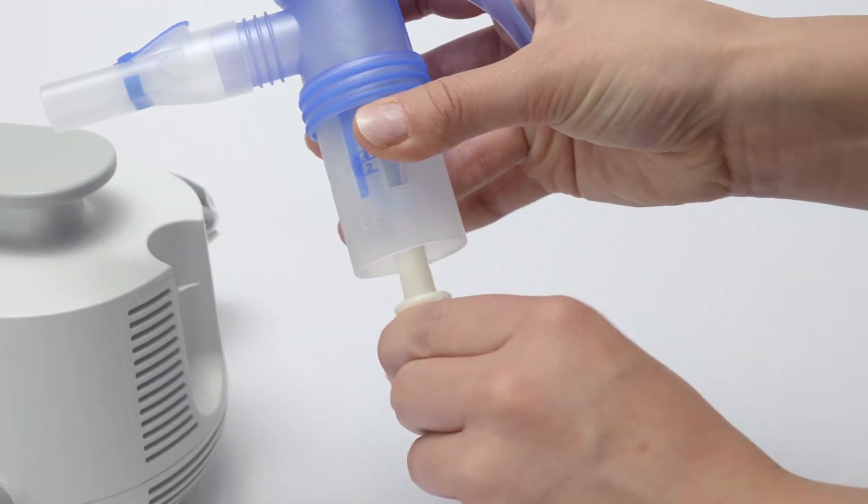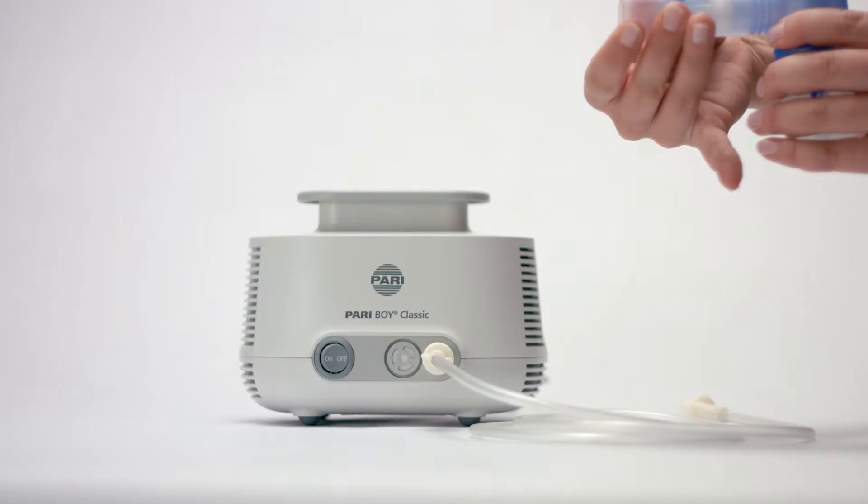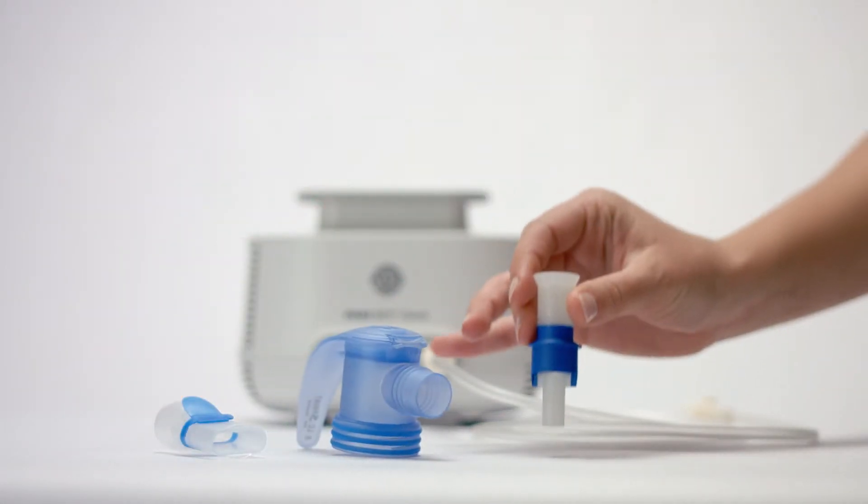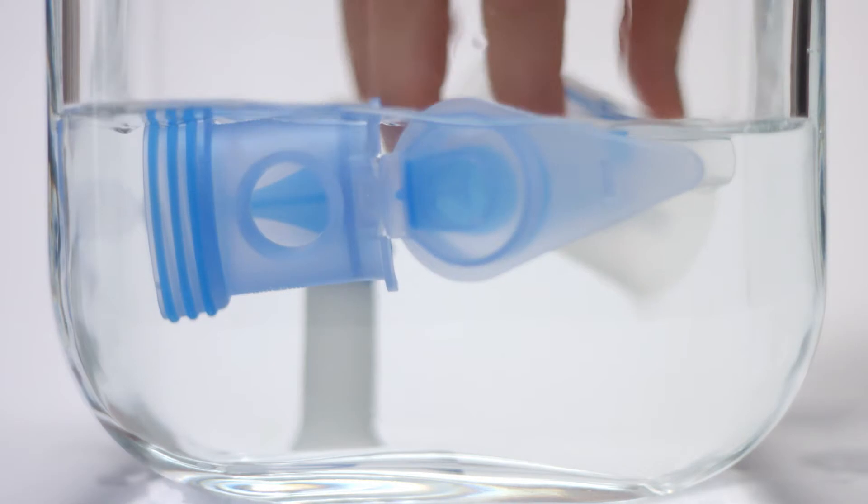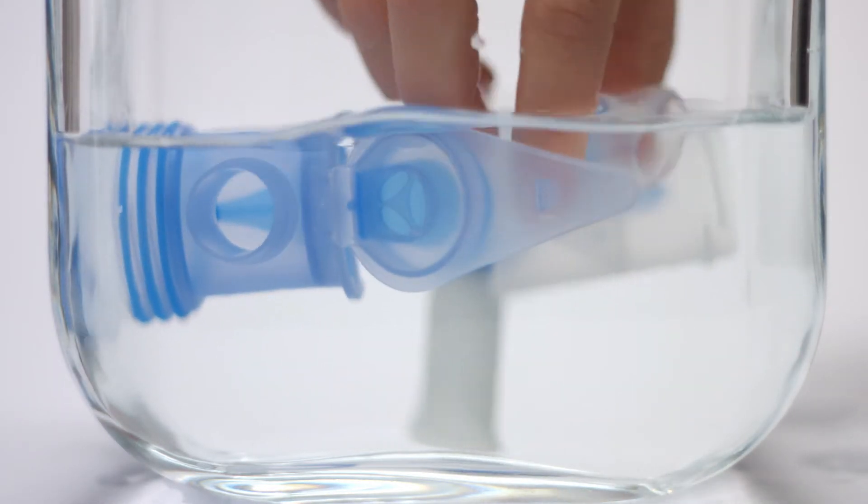Disassemble the nebulizer for cleaning and disinfection. Clean the nebulizer after each use. Wash all parts in warm tap water with dishwashing liquid before rinsing thoroughly in running water.